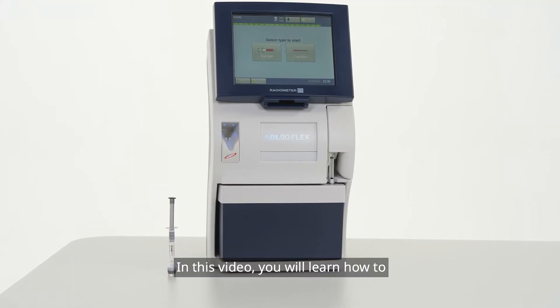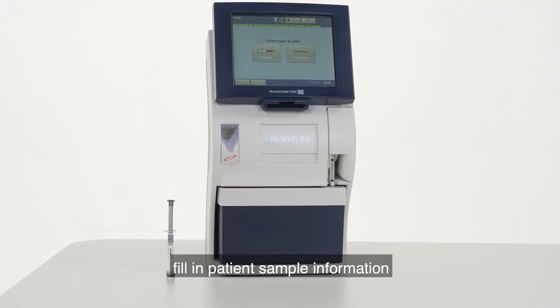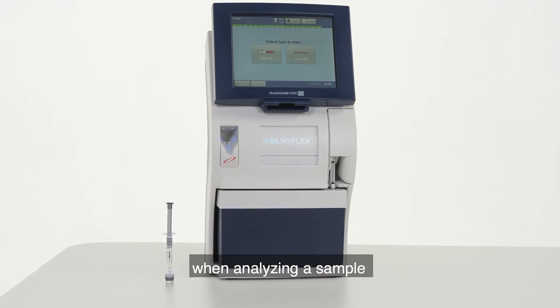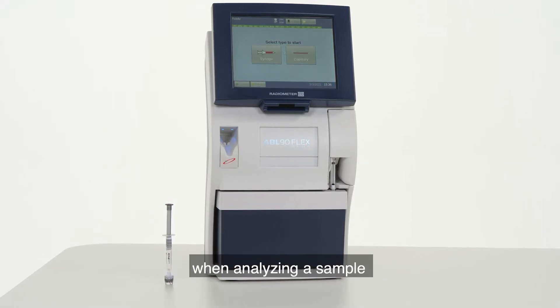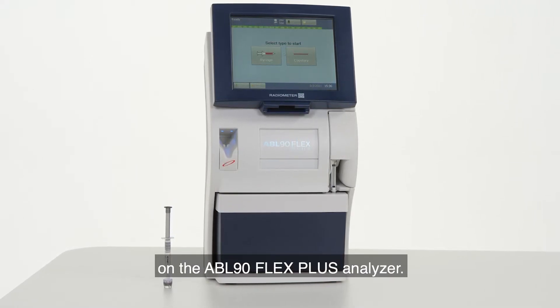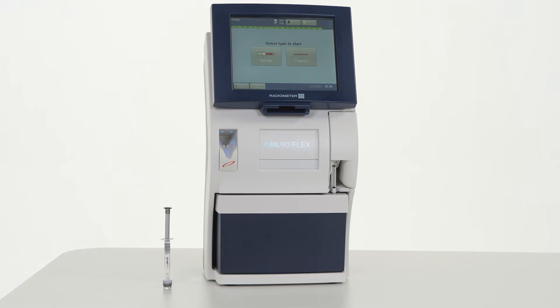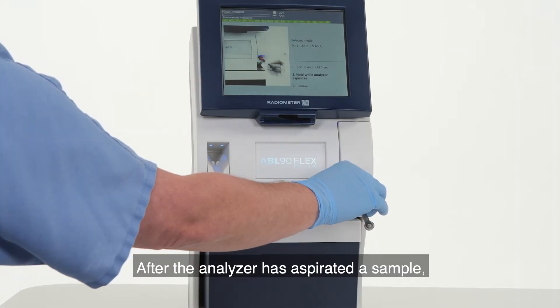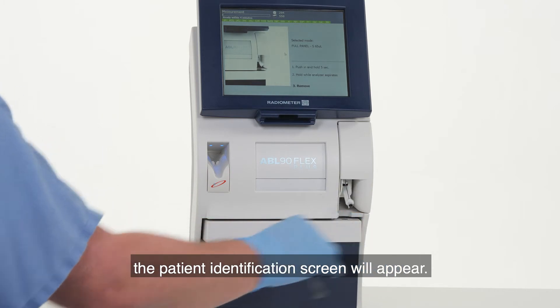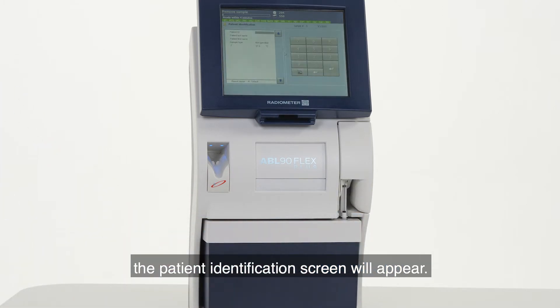In this video, you will learn how to fill in patient sample information when analyzing a sample on the ABL90 Flex Plus analyzer. After the analyzer has aspirated a sample, the patient identification screen will appear.